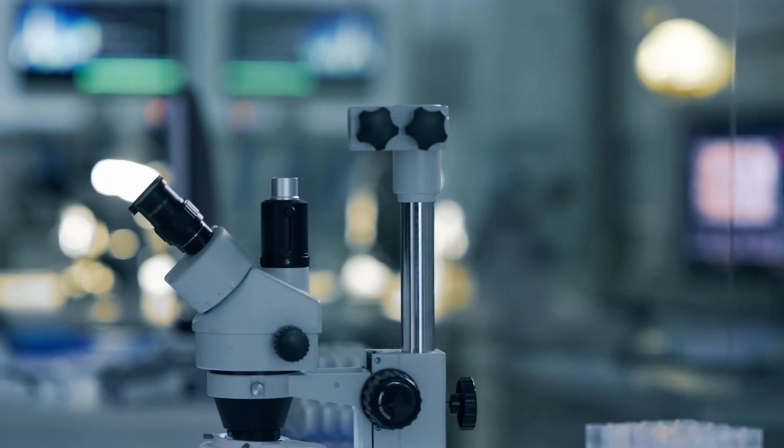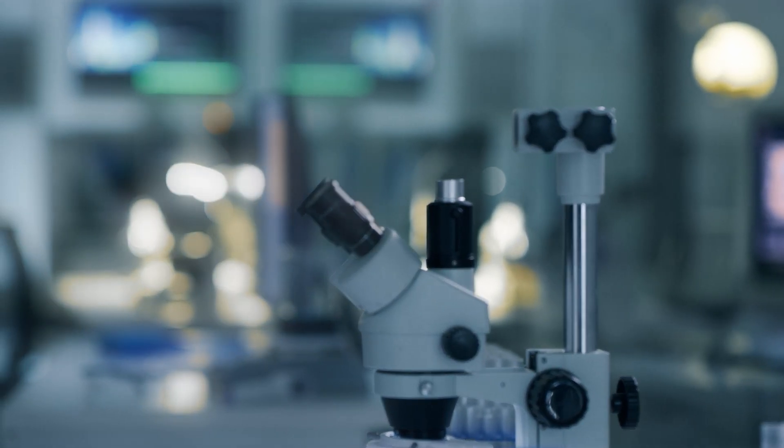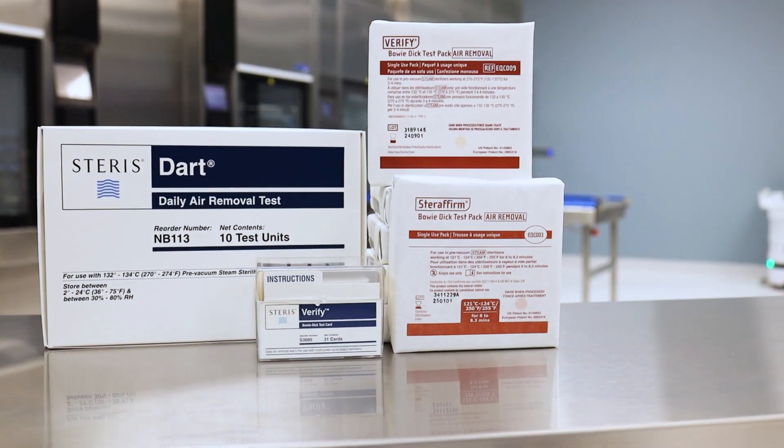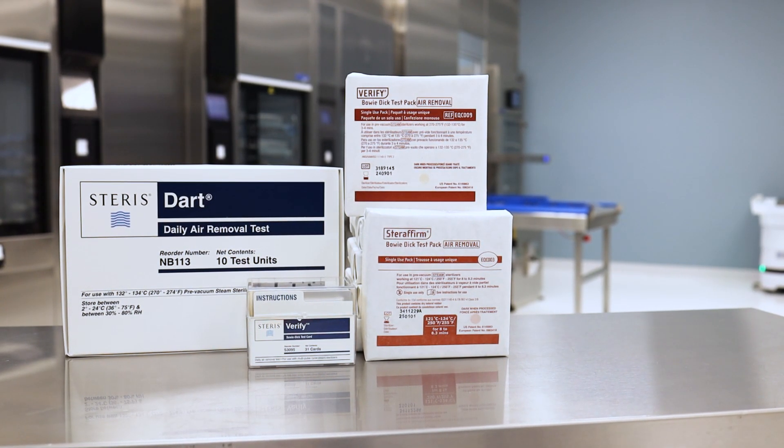Current good manufacturing practices require demonstration and documentation that the sterilization process is effective, controlled, and reproducible. The daily use of air removal tests helps meet these requirements by demonstrating the effectiveness of pre-vacuum cycles and steam sterilizers.